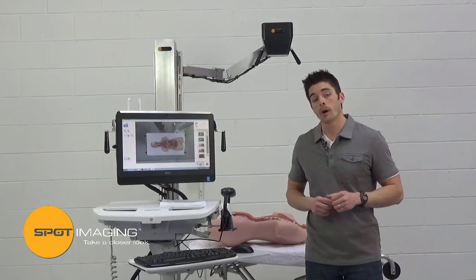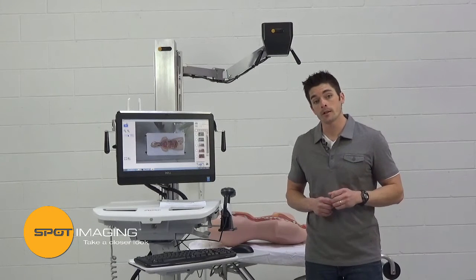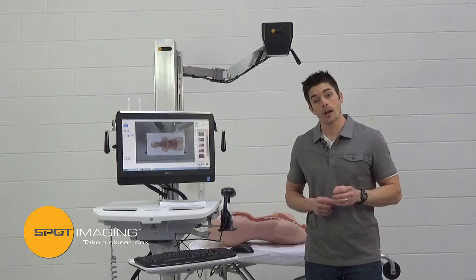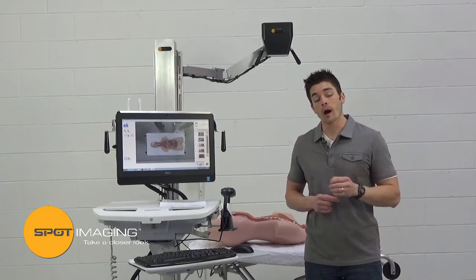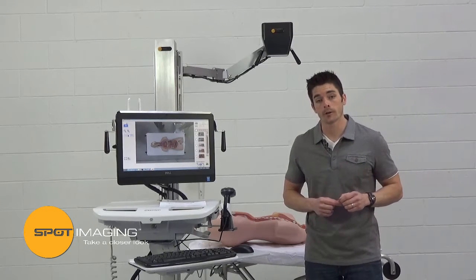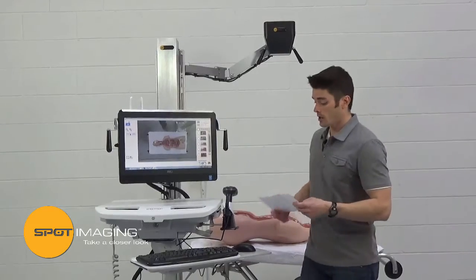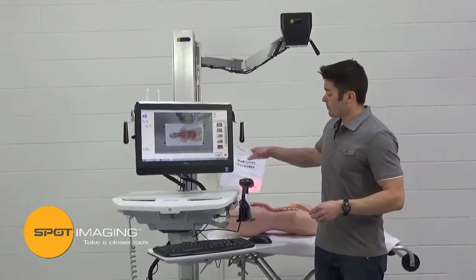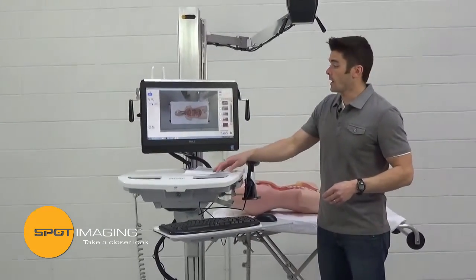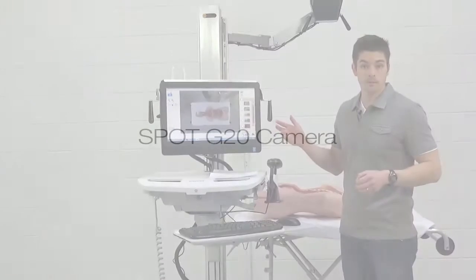The case accessioning barcode scanner makes login of cases fast and error-proof, ensuring that the images you capture will be properly filed with their case identifiers. To start a case, you simply log in your case barcode and it immediately pulls up any previous images you had in that case.